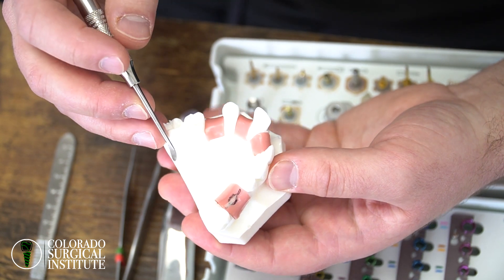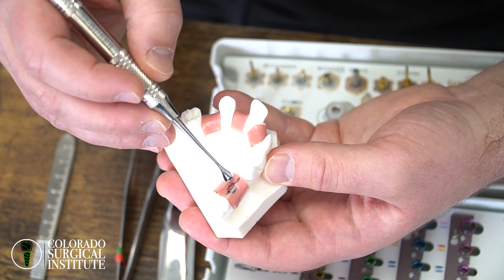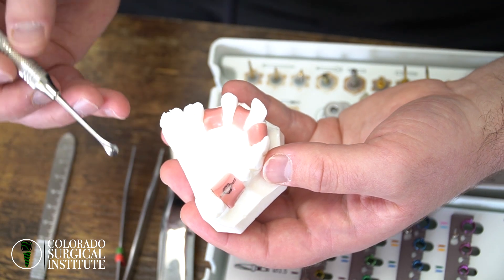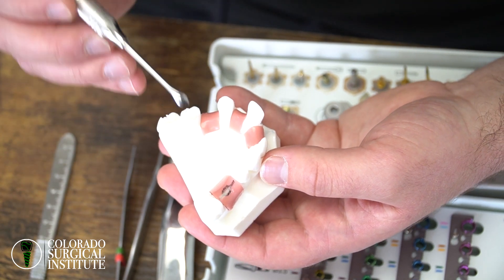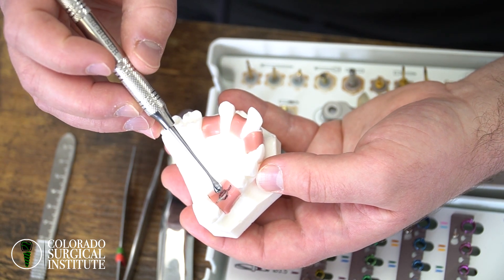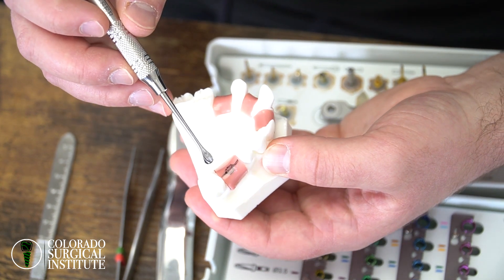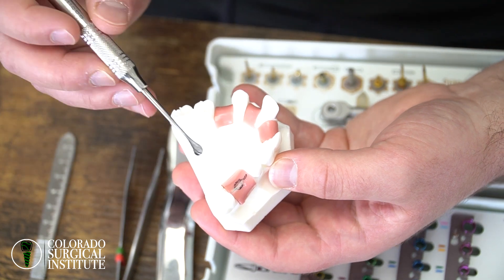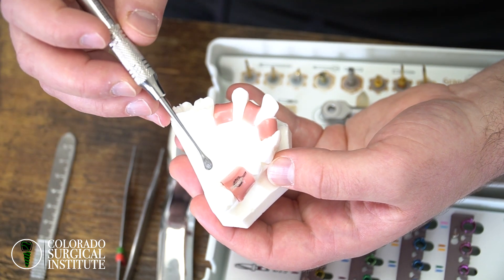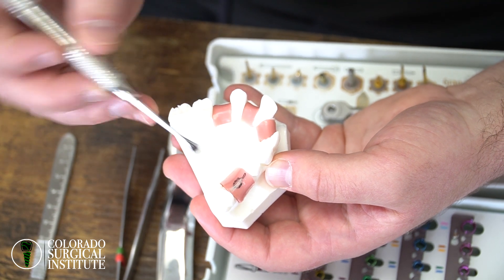I fell for this in my first couple of years placing implants — I would put my incision in the middle, place my implant, close it, and then my incision would open up about a millimeter. But if your incision opens up one millimeter directly over the implant, bacteria will get over the top of the implant and you'll get one to two millimeters of bone loss. At that point you're going to have to take the implant out, graft it, and retry. You see posts on Facebook all the time: 'I placed this implant one to two weeks ago and there's bone loss — what happened?'